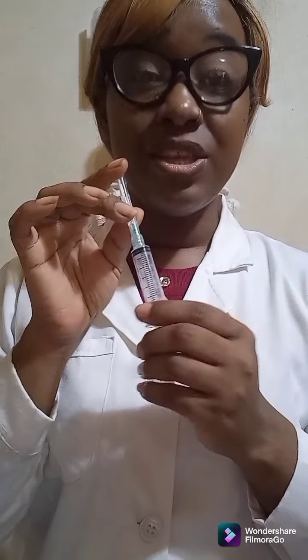These needles go with what we call the syringe system. This method of venipuncture is normally used for patients with small or difficult veins. Needle gauges vary, but the standard needles for venipuncture on normal veins are our 21 gauge needles. The 22 gauge needle is preferred for older children and adults who have small or difficult veins. The syringe system is also preferred for the elderly whose veins are easily collapsed.